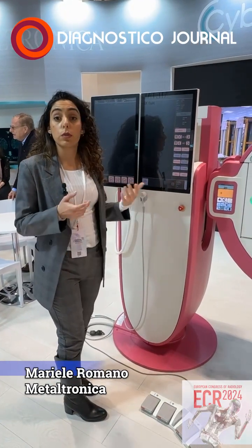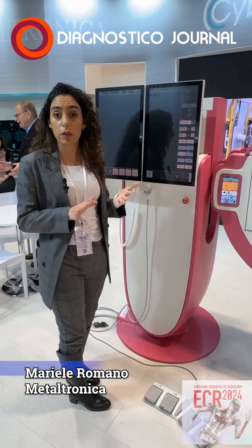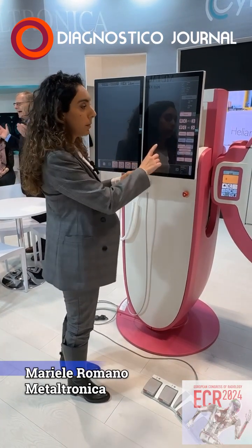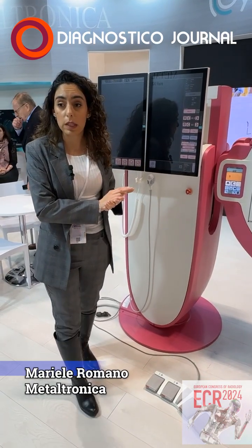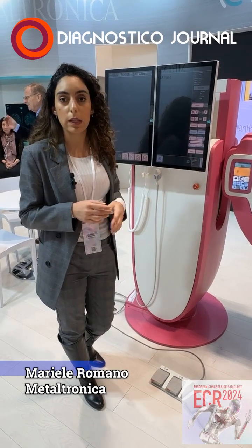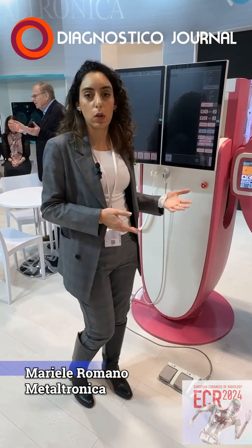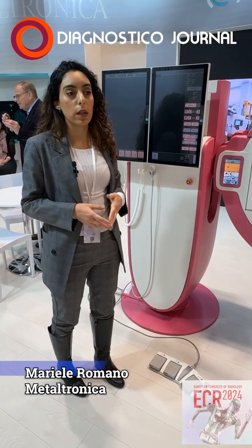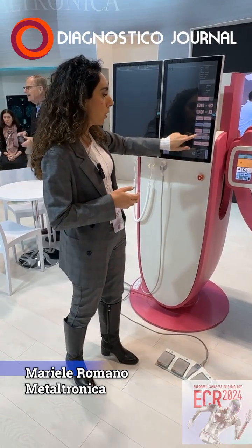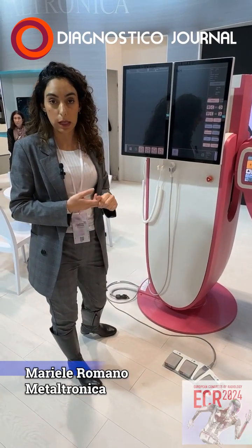There is the opportunity to retrieve from the PACS a previous exam of the same patient to have a direct comparison of the new images and the old ones. Of course, there is the possibility to adjust the angle for tomosynthesis, because we have 3 angles: a narrow one that is 15 degrees, an intermediate that is 25, and a wide that is 50 degrees. You can choose between the 3 depending on the need and on whether you want to focus more on the in-plane resolution or on Z resolution. So we go with intermediate, and then I will show you 1 FFDM and 1 tomosynthesis scan.